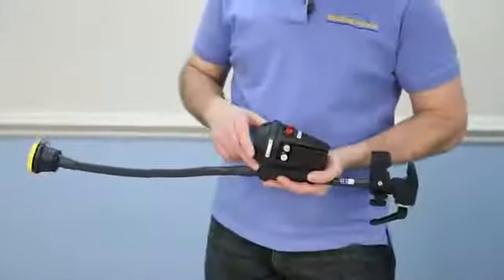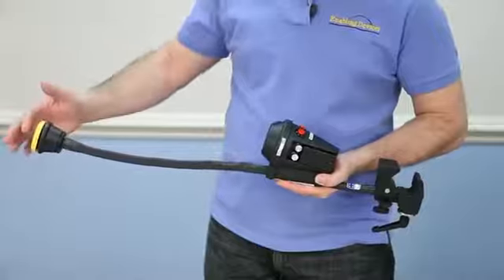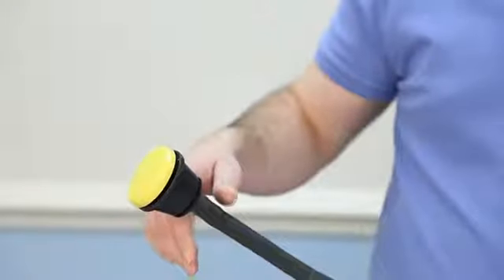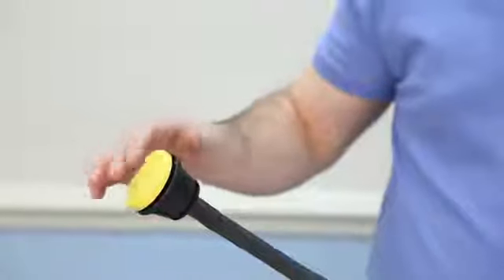Okay. Now that I've recorded all my choices, just press our switch here in the front. Hamburger. Hot dog. Hot dog.